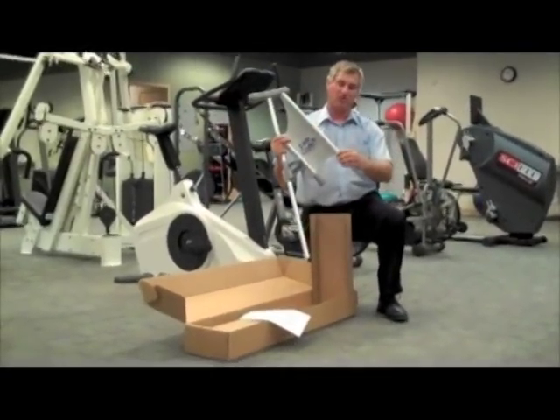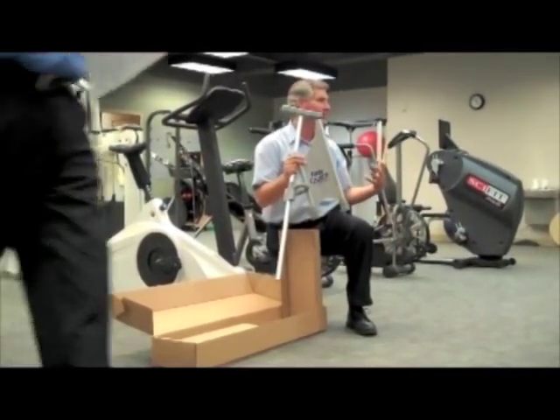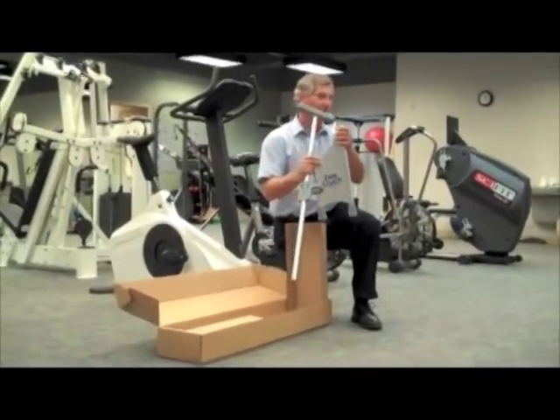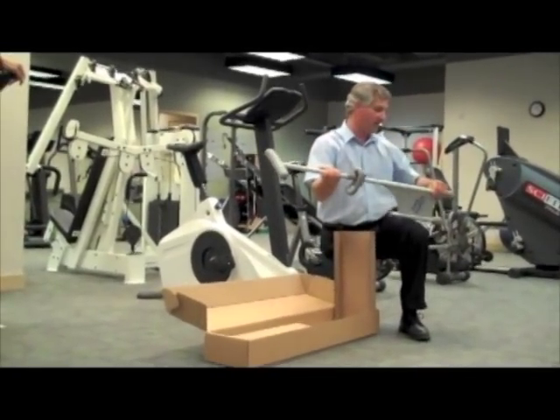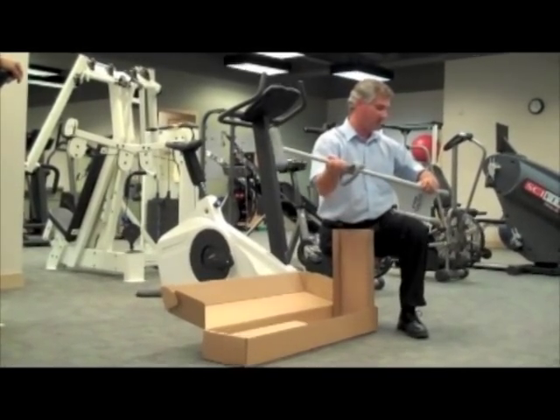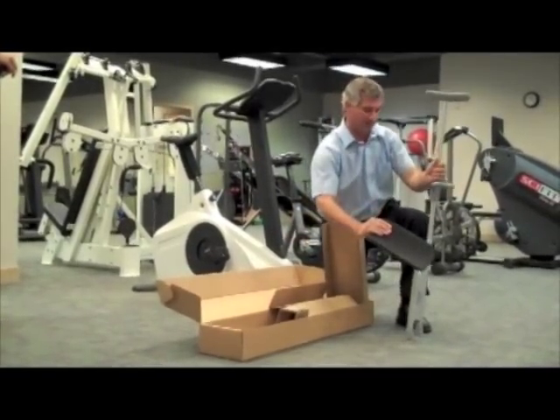On the crutch, it has approximate height adjustments. You all probably know better than me that 5'8" is not a standard length for a 5'8" person — they're not all the same. So what we did is just took some averages and created the crutch knowing that we would have to adjust them, that a patient would have to adjust them as they got used to it or adjust compared to their particular height.